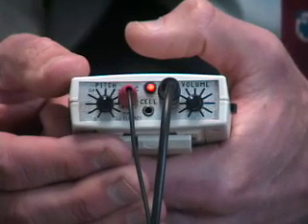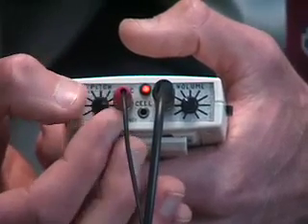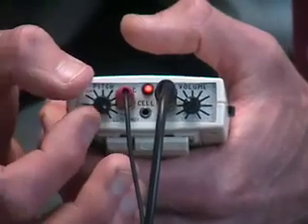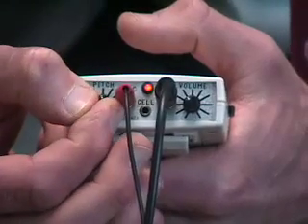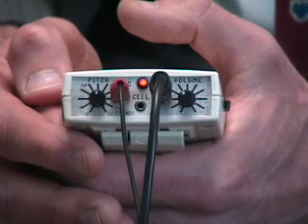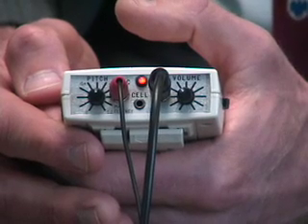the pitch shift is about a half octave down. I can continue to turn it to three quarters, one, and as low as minus 1.2 octaves. Most people don't listen to it this low, but most people like it about a half octave down. The further down you shift your voice, the more effective the device should be to reduce your stuttering.